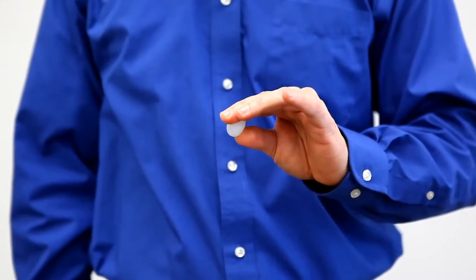You just take it, you roll it into a ball, and place it over the outer ear canal, avoiding any hair.